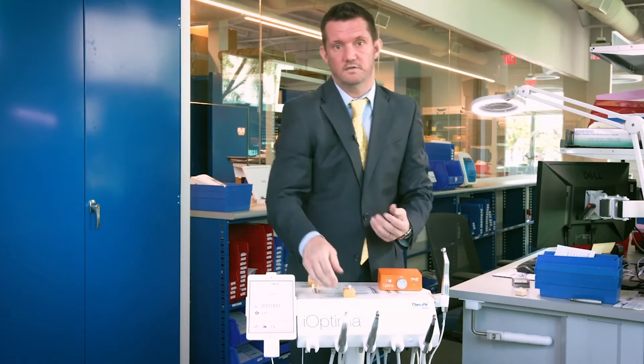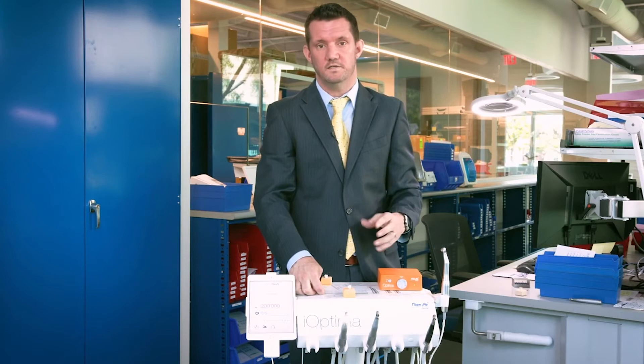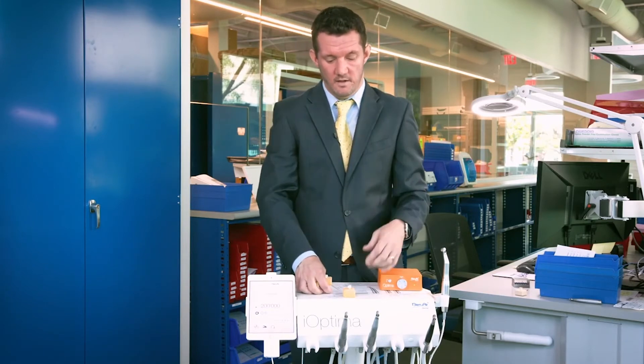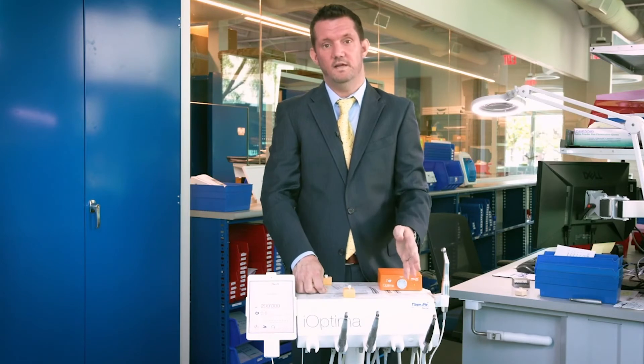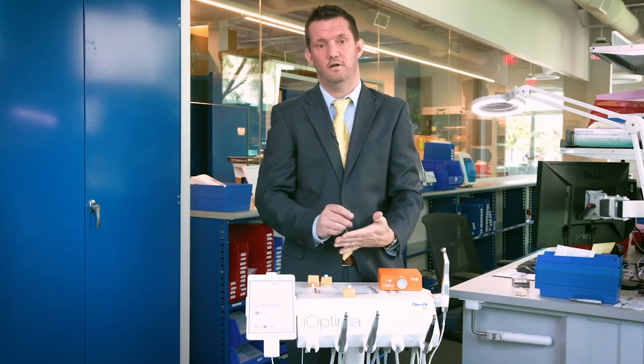It's much like an electric toothbrush versus a standard toothbrush. If you picked up a new electric toothbrush and used it like a standard toothbrush, it would be very heavy and cumbersome. So it's a similar concept. The power of the electric hand piece allows you to mill and just move through the material almost like butter. Your technique is adapted around the air driven lack of torque, so you need to feather and paint brush.